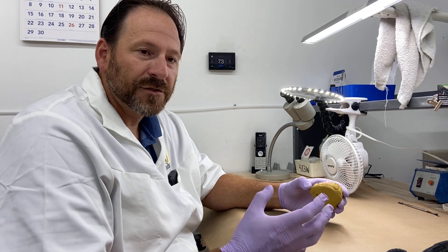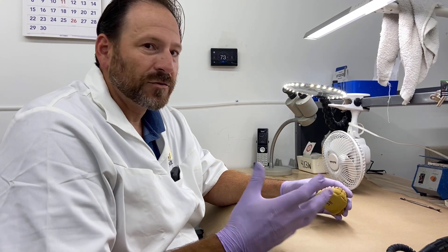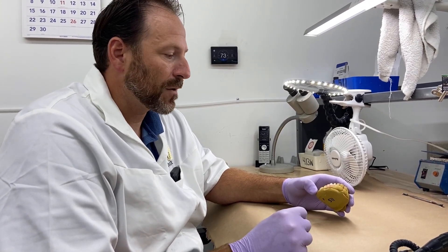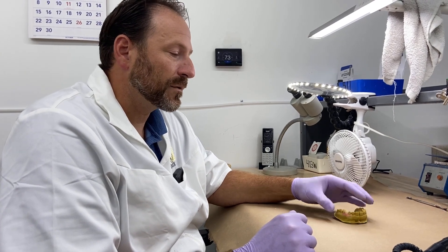As you can see, it works pretty well. There are challenges — if there's limited occlusion, you don't have enough space to put good diatorics or retentive locking mechanisms in that socket, which can be problematic. You have to be concerned with a couple of those things, but generally speaking, it's a nice process and works really well.